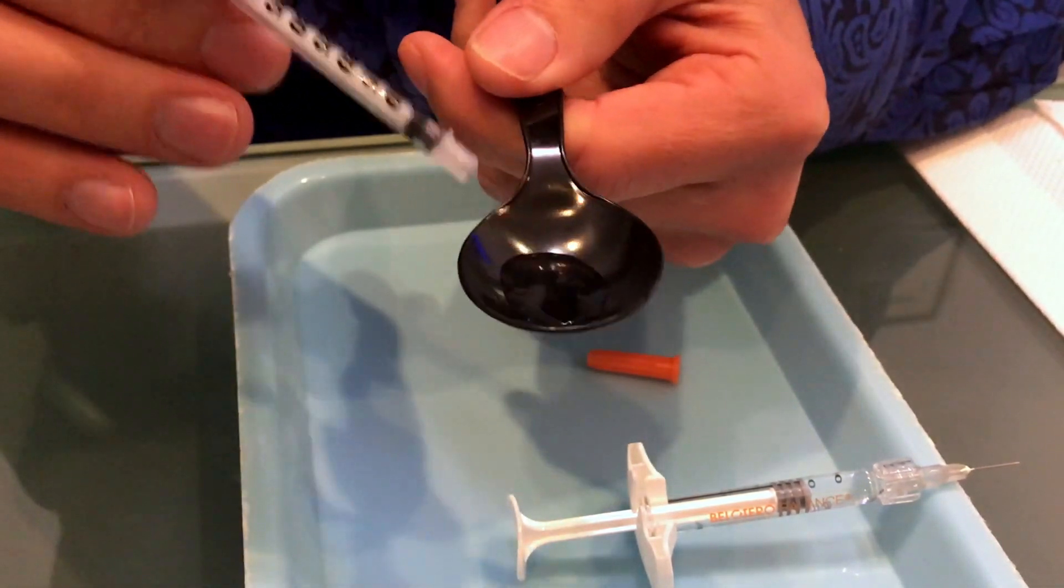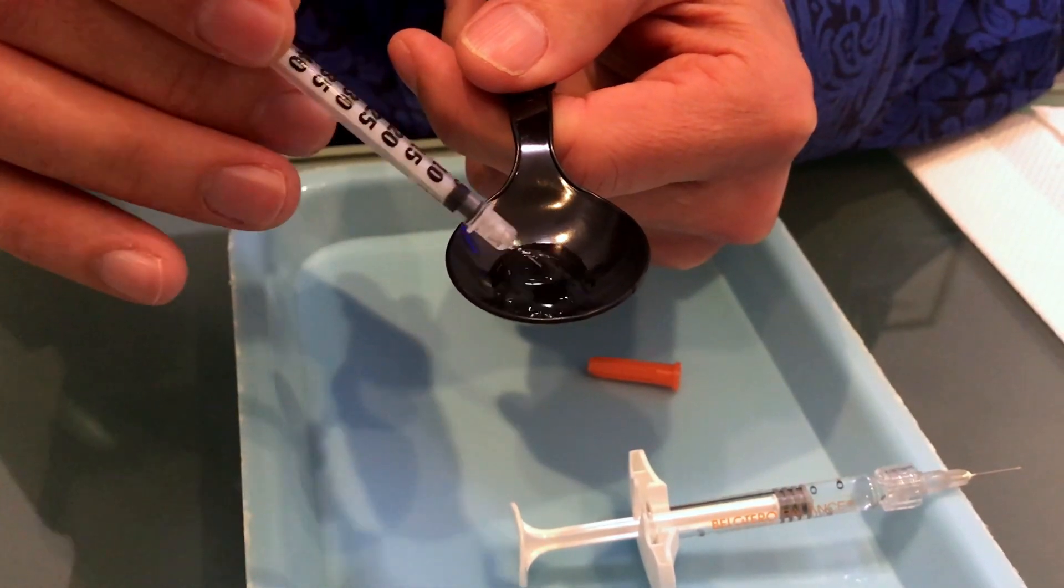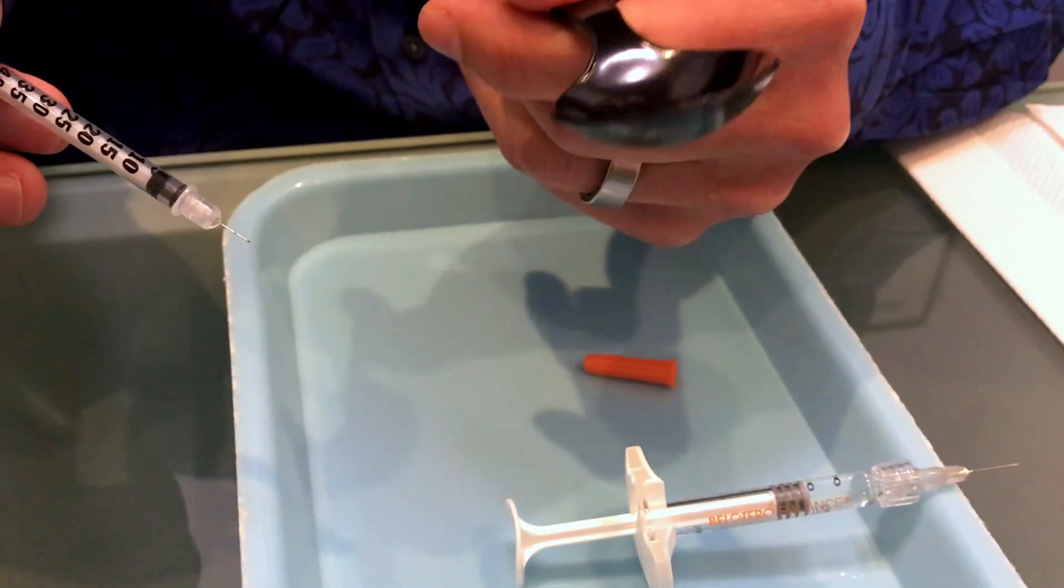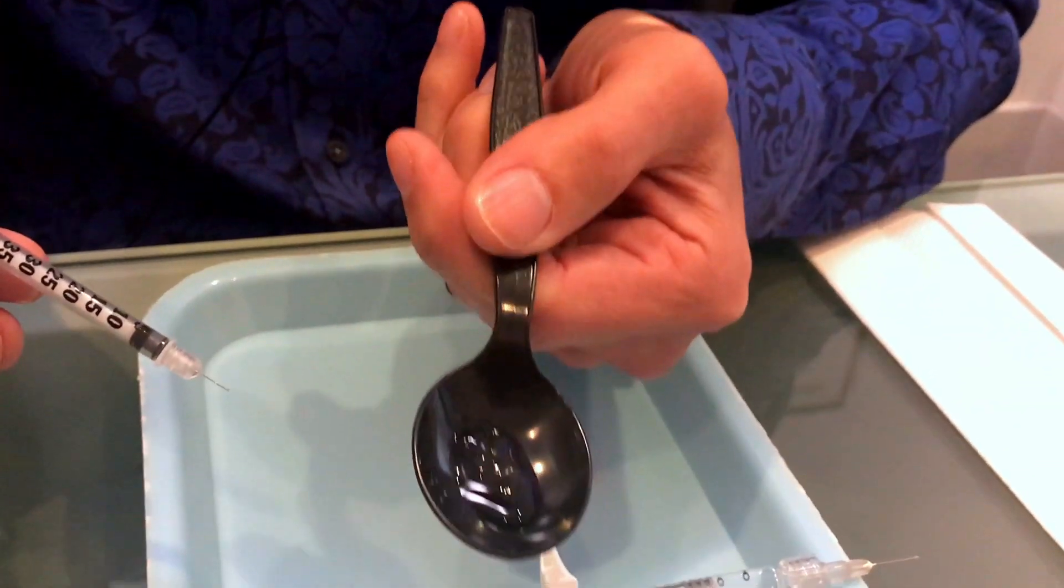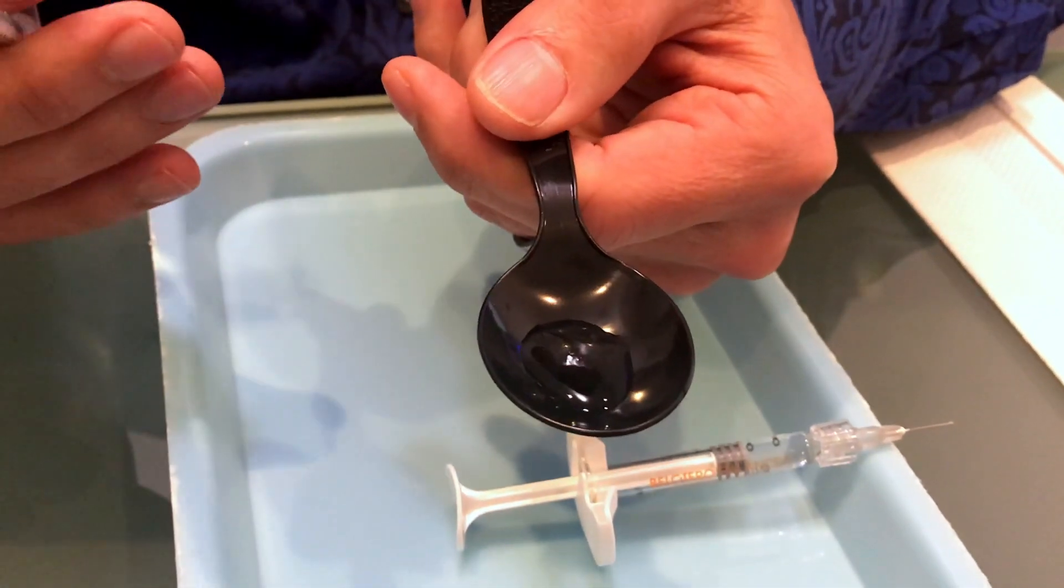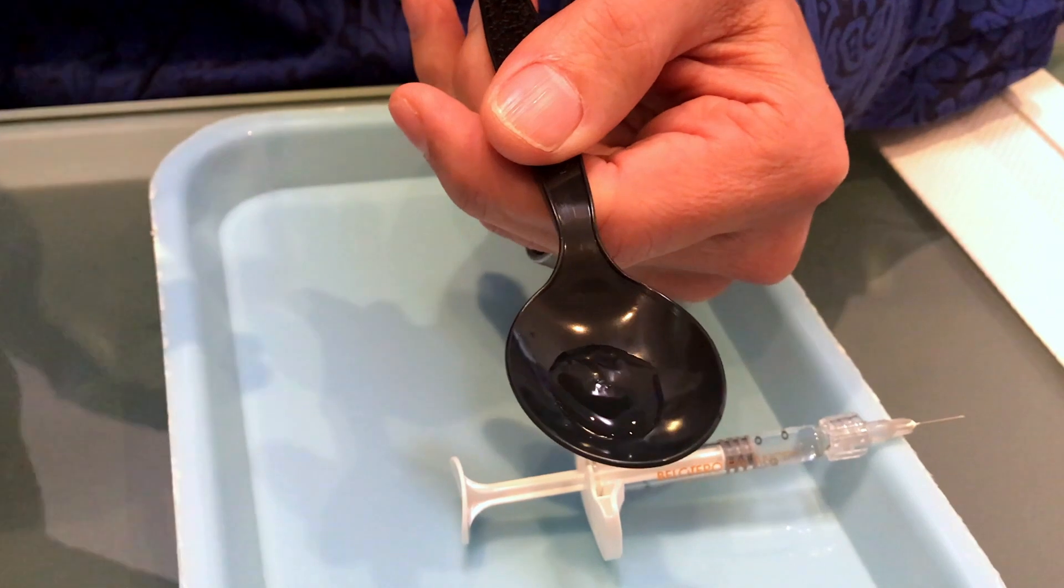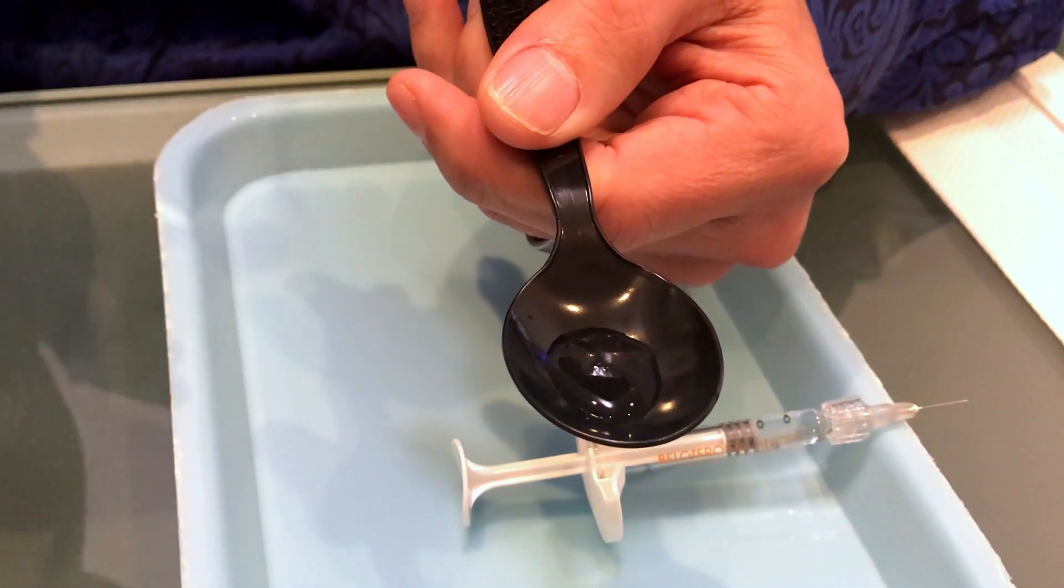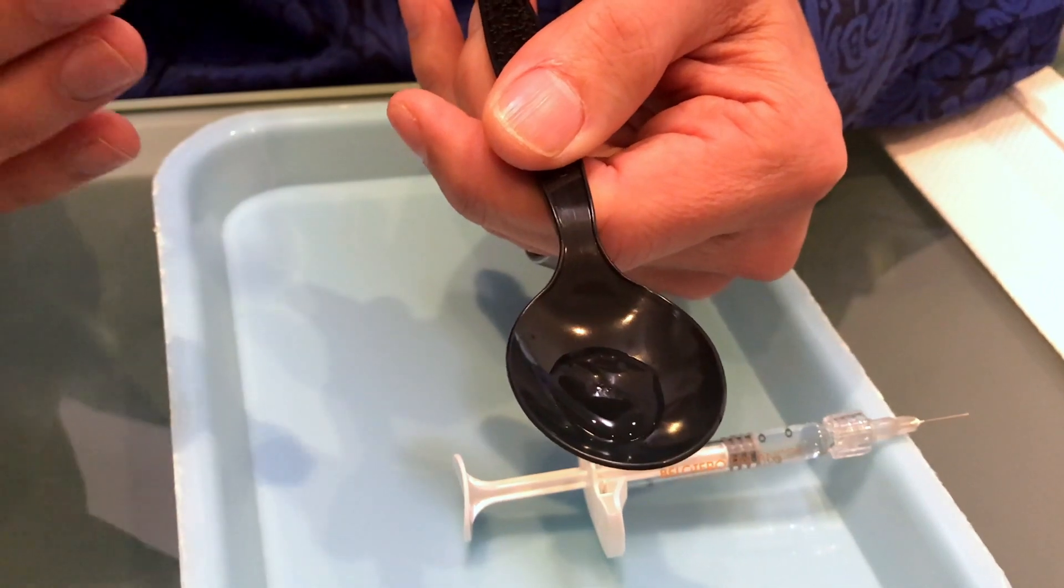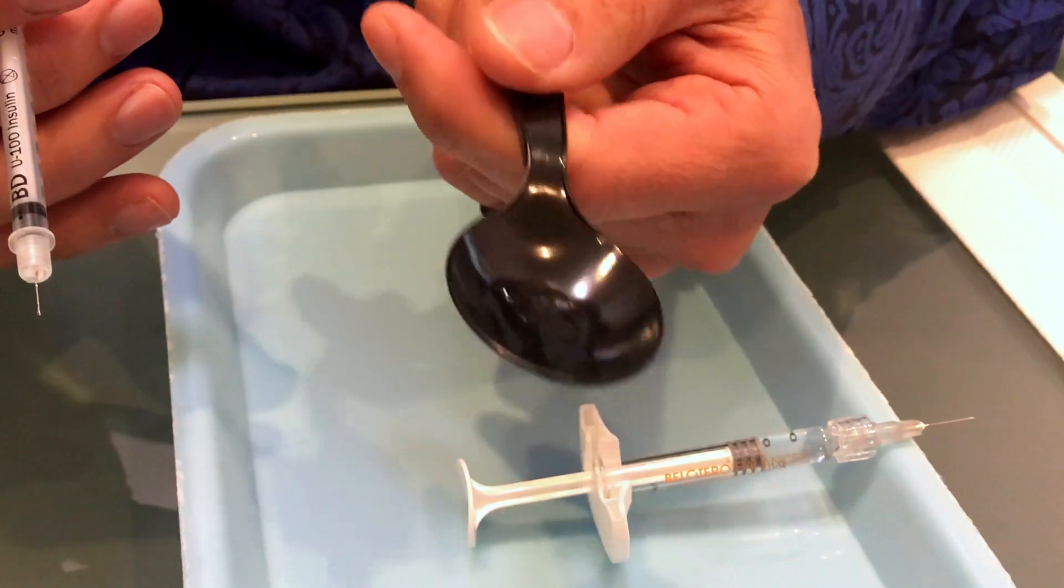So what you can see is the filler is dissolving. There's still a little particulate matter there but a lot of it is dissolved and so what the research says is that you're going to get a lot of it dissolved almost immediately but it takes a total of three days to fully kick in and we're obviously not going to wait three days for it but I want to just see how much of it dissolves quickly.